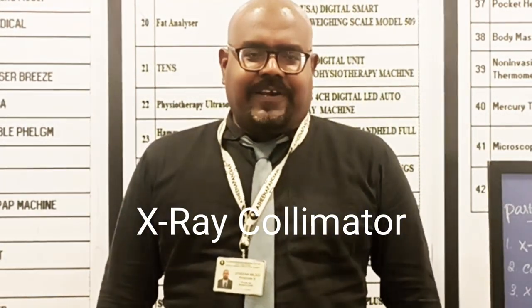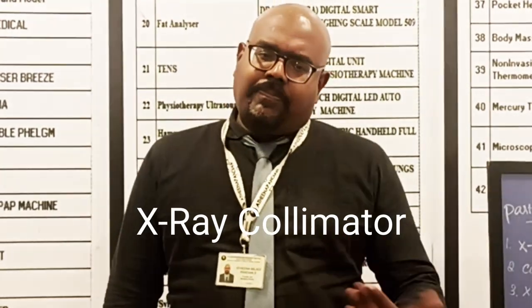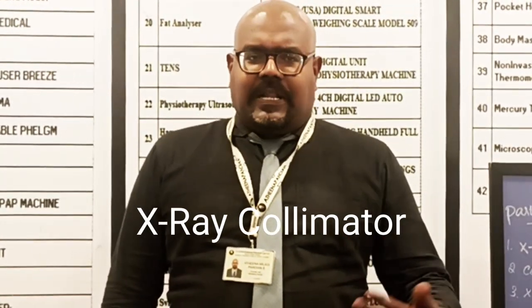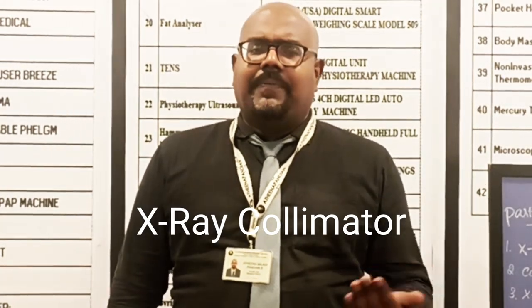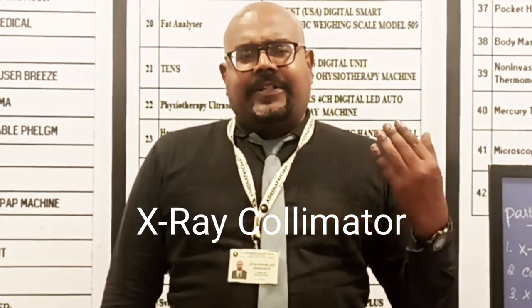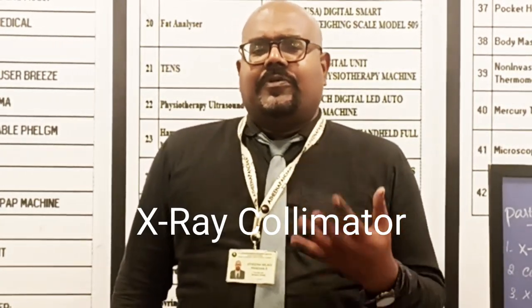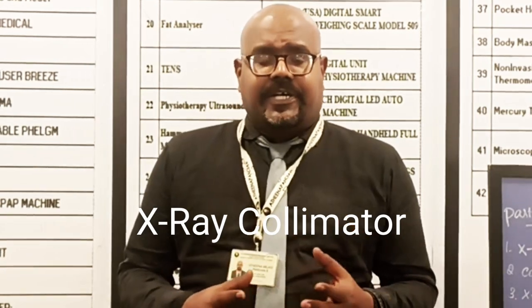Hi and hello, I am Athenamadhyan here. In this video we are going to see one more part of the X-ray. This is the last session where we are seeing something about the X-ray tube. In this video I am going to talk about the X-ray machine.